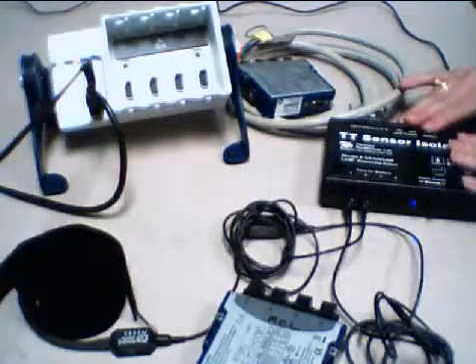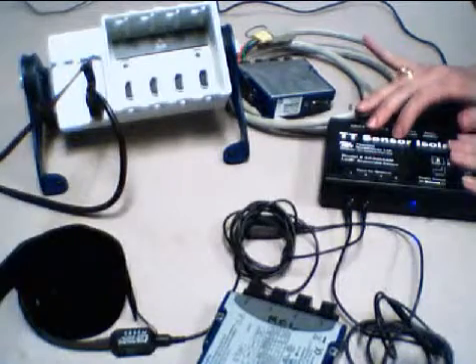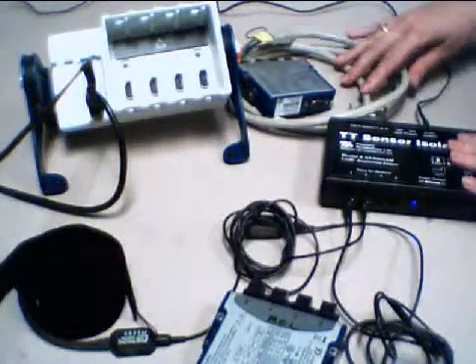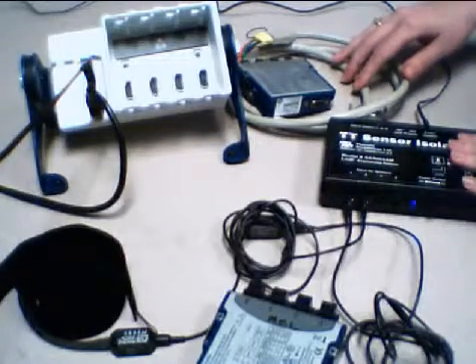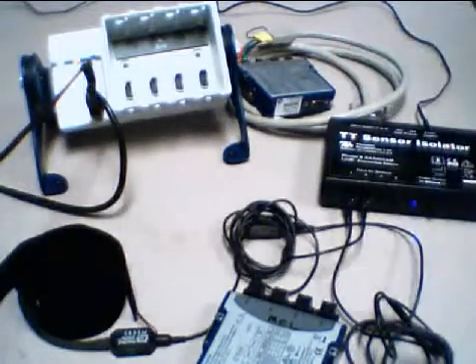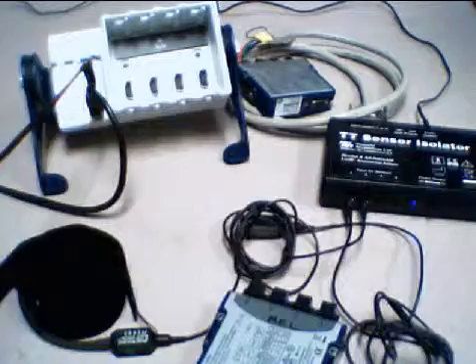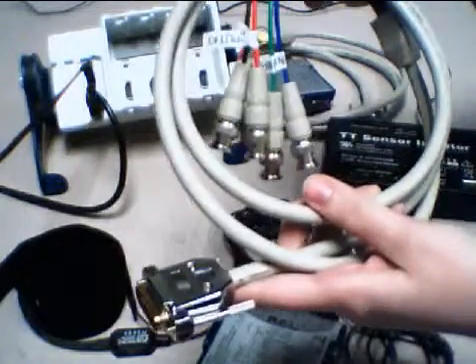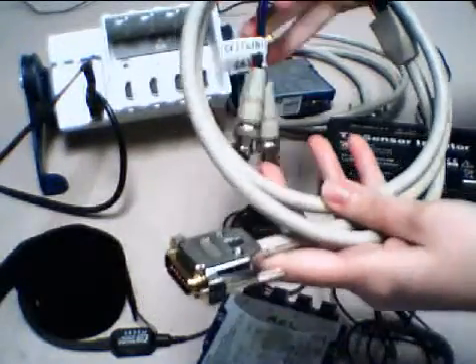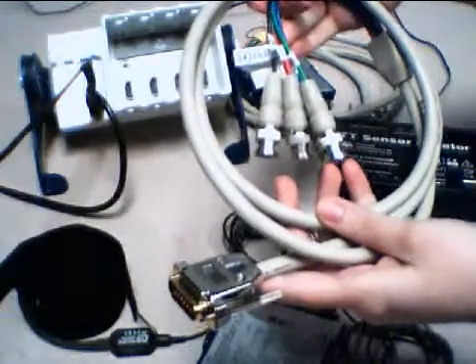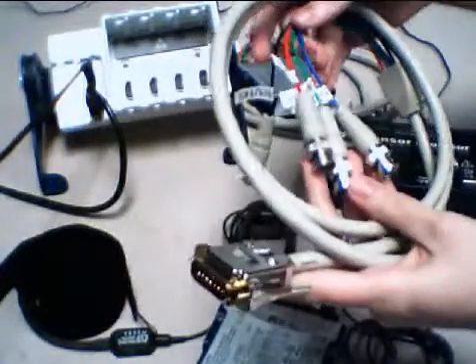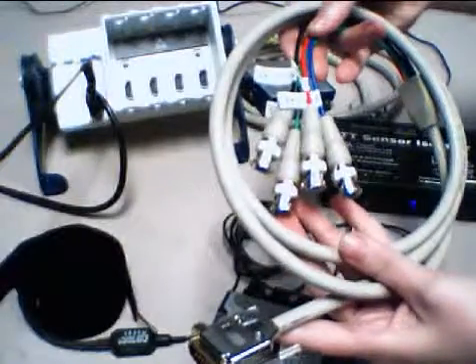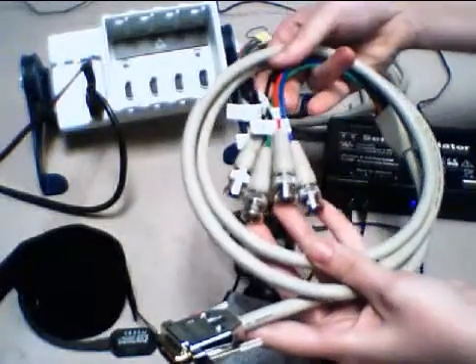The way that the four analog voltages leave this isolator is using a D15 cable. Thought Technologies provides two cables that you can use. The first cable is going to take the cable and break them out into four BNC connectors.